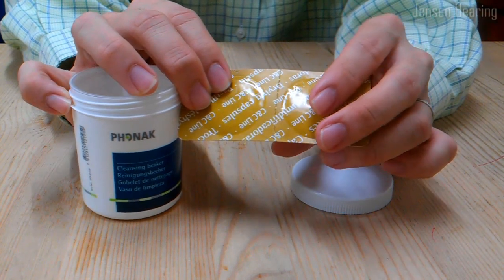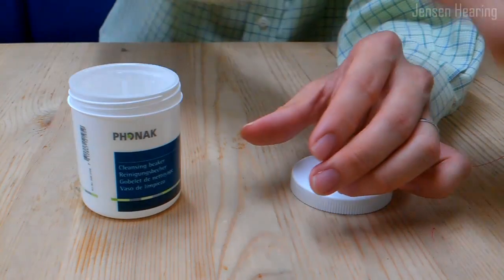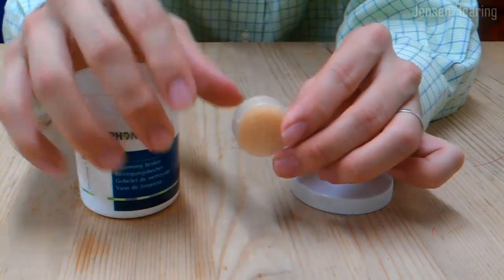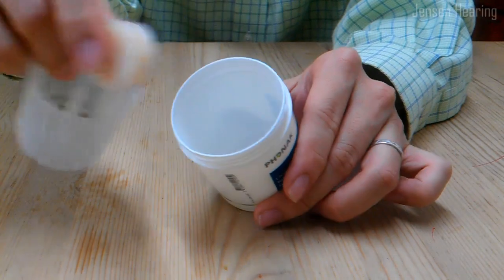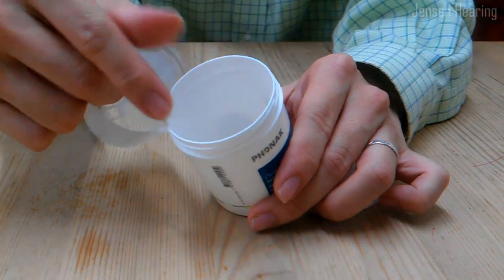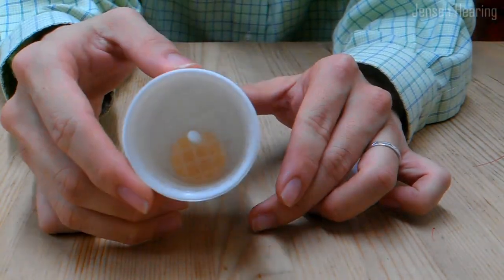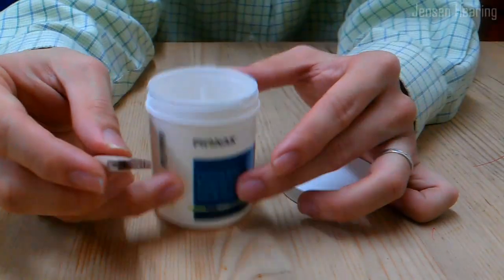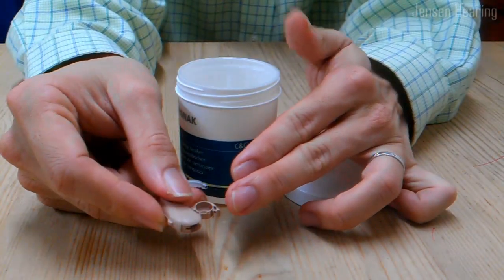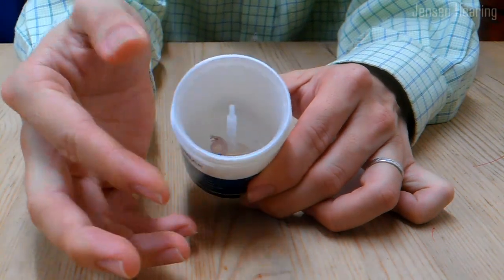Pop out the drying capsules the way you would pop out pills. Take a drying capsule and insert it into the drying jar like this. When you put your hearing aids in at night, make sure you open up the battery door and insert them inside.